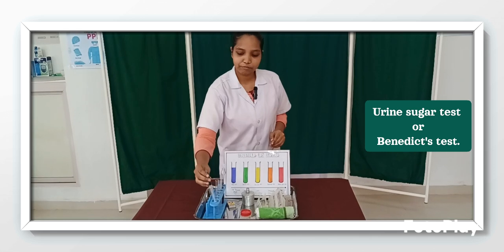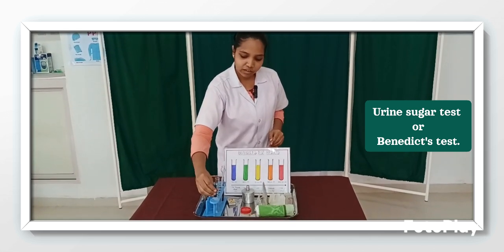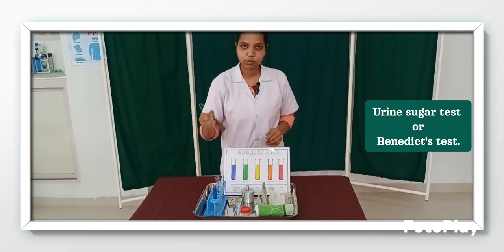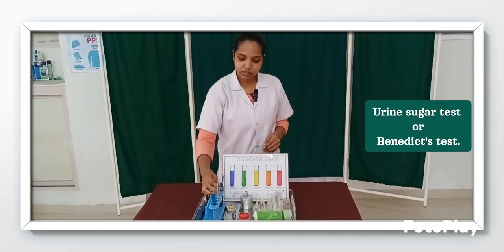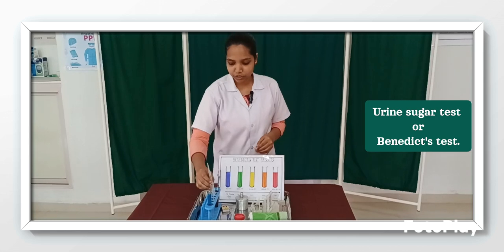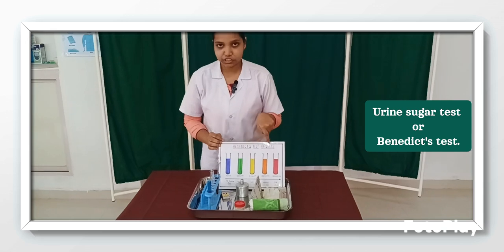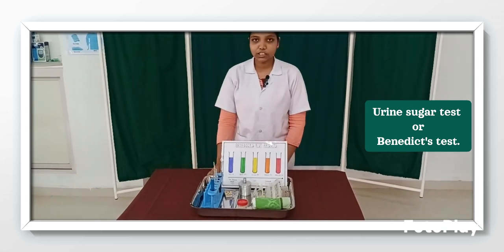Then we have a 5 ml syringe with the Benedict solution, a test tube stand to keep the material, then test tube holder to hold the test tube, then dropper to add the urine drop by drop. Then here we have the interpretation chart to know the color changes and what it indicates. So let's see the procedure.